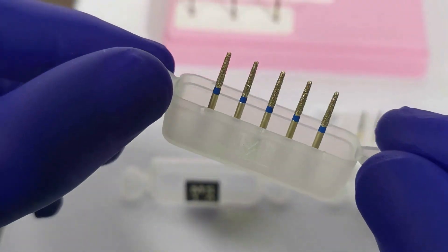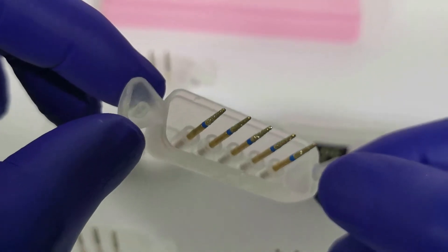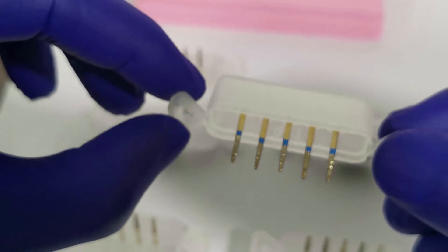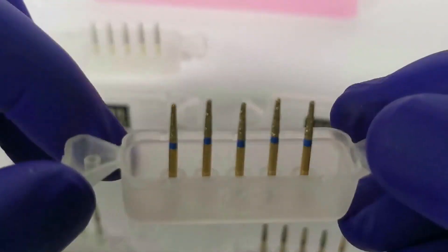It is also used for preparing all the margins, 360 degree margins, when planning a monolithic zirconia or a monolithic metal prosthesis and for provisionalizing laminate veneer preparation.